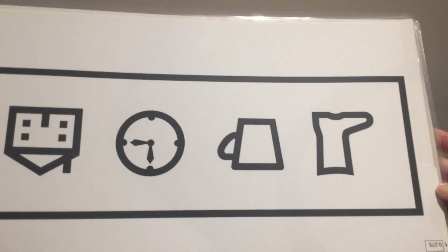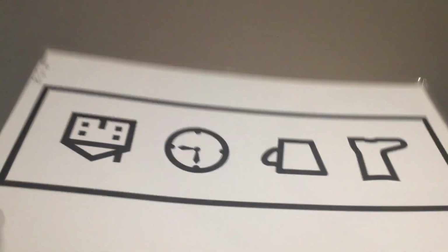Okay, flip over again. Now we're going to 4 pictures. You know, it's crowded, we've got the bar around it as well. And here, facing us, there we are. If they get 4 correct, their acuity is 0.8 LogMAR. Right, and so on. So it's exactly the same. You flip it over. The answer is on the page here.